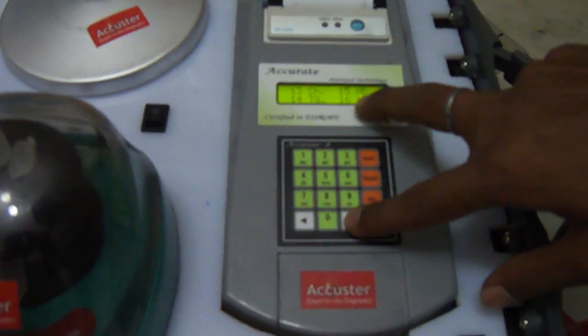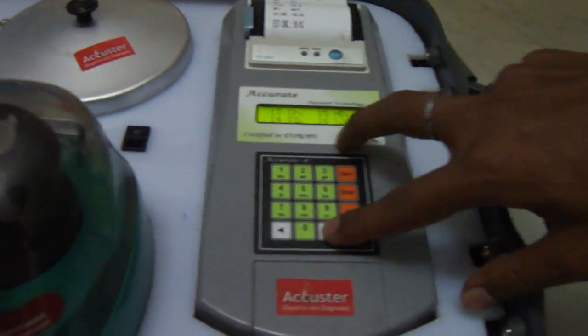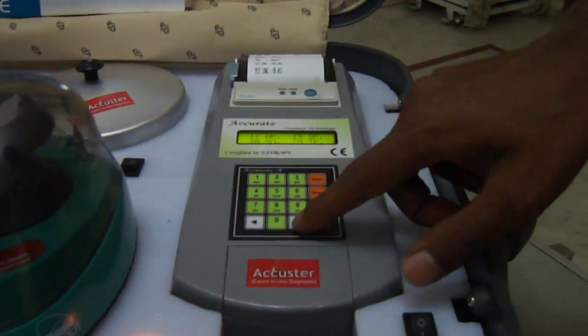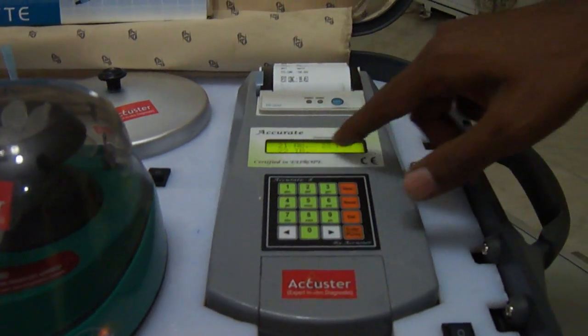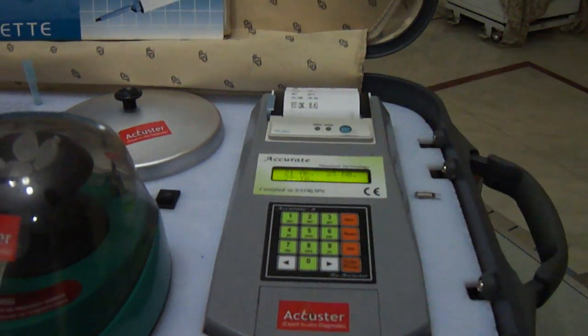Cholesterol, HDL cholesterol, LDL cholesterol, triglyceride, alkaline phosphatase, SGPT, SGOT, albumin, direct bilirubin, total bilirubin.